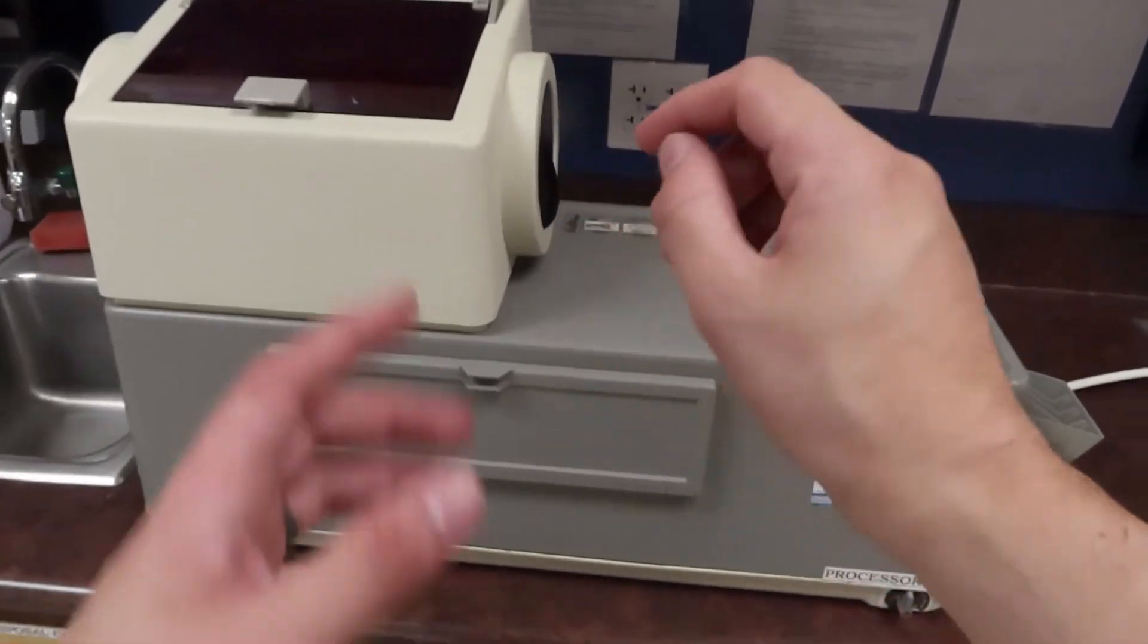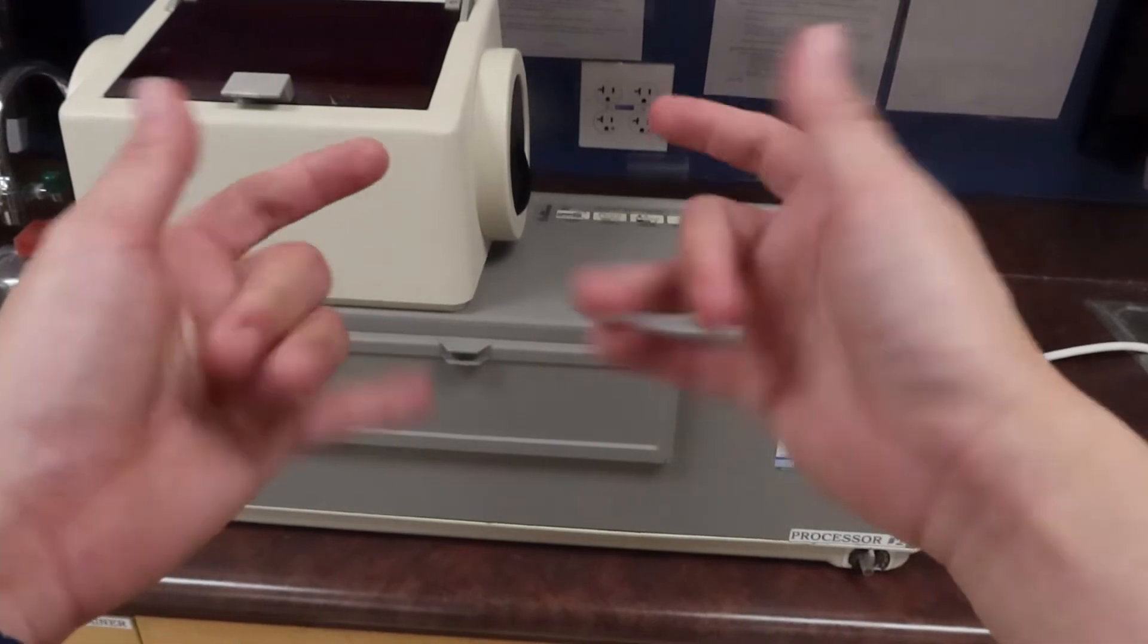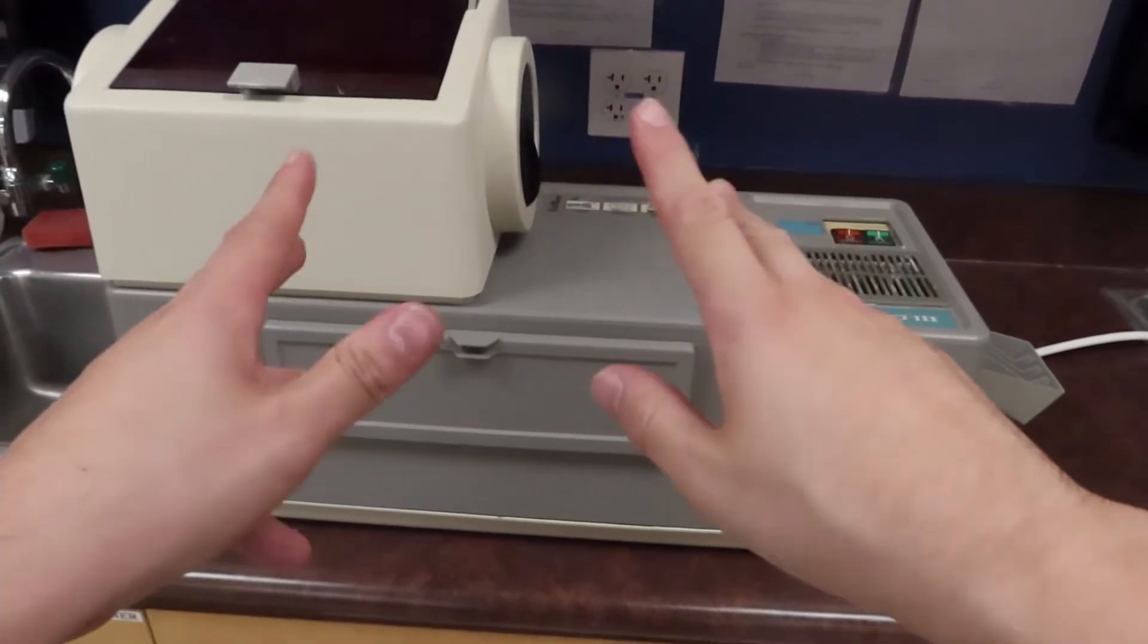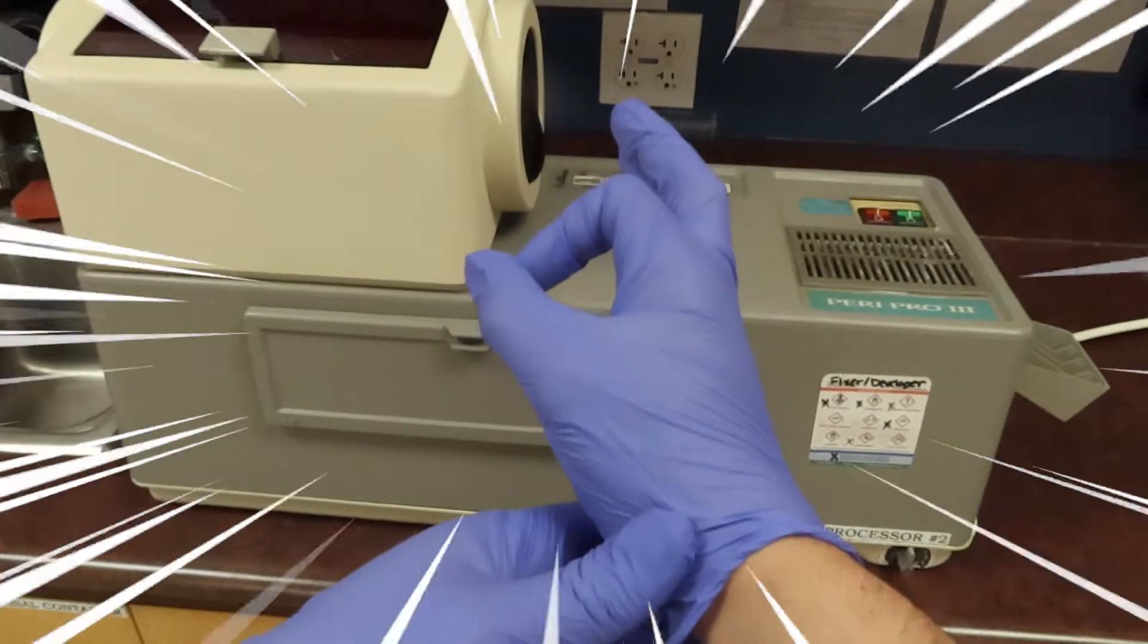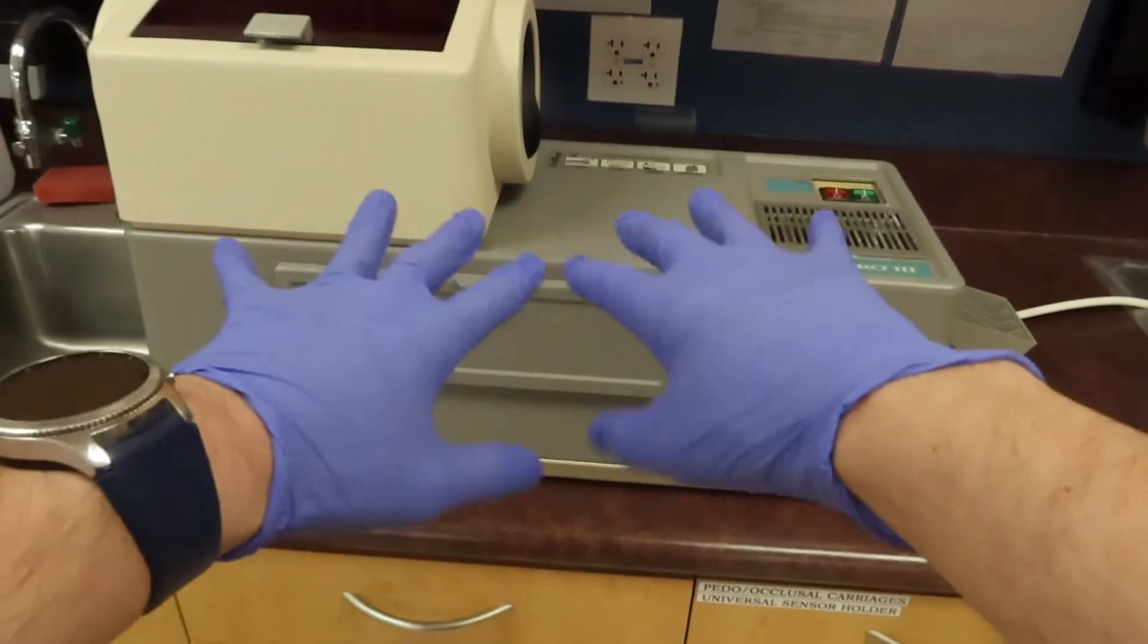So let's go ahead and put some gloves on. Let's do a little glove jitsu. Awesome, now that we have our gloves on, let's go ahead and take a look at the actual guts of this machine.